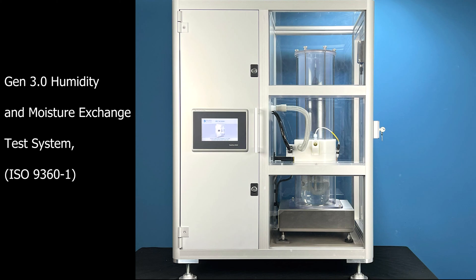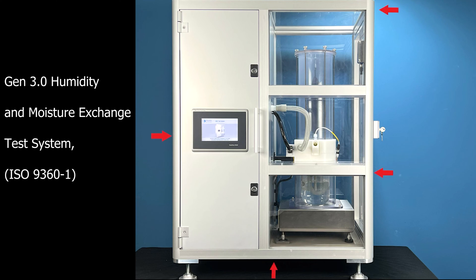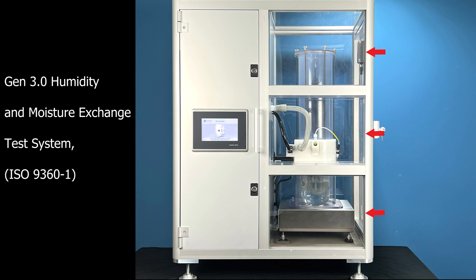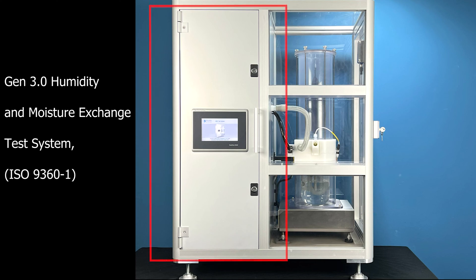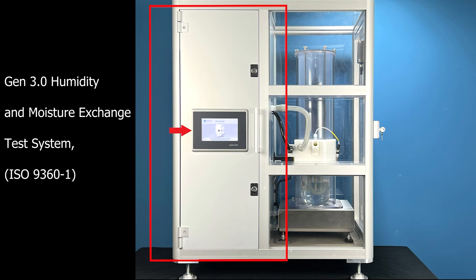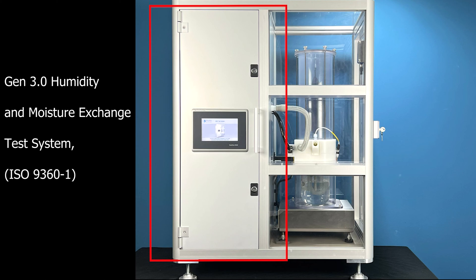The exterior is comprised of anodized aluminum extrusion and panels as well as clear polycarbonate windows. Starting at the front on the left half of the system you will see the operator display and control panel. Behind that is the electrical panel and behind the electrical panel is the flow generator.